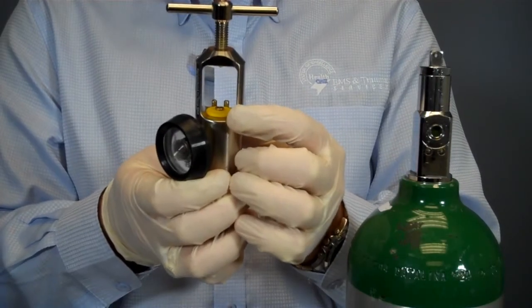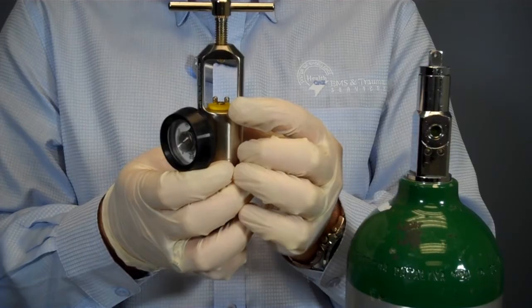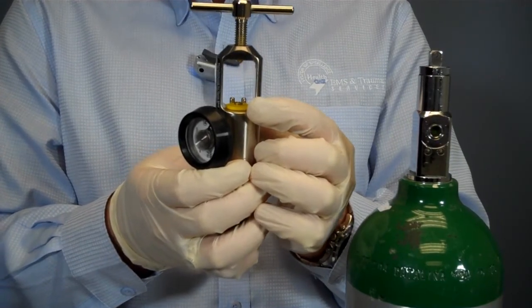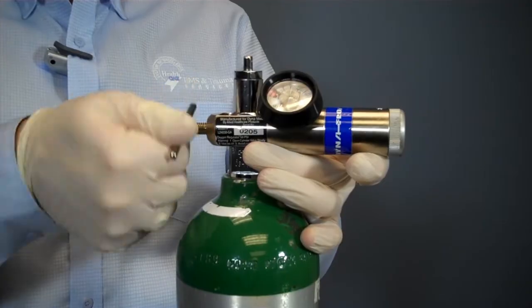Now I will assemble the regulator and the oxygen bottle. I will assemble the regulator onto the tank, ensuring the presence of an o-ring and proper alignment of the pins.